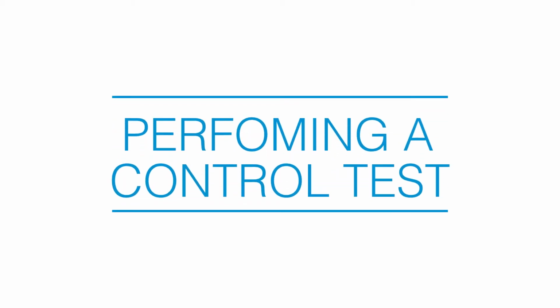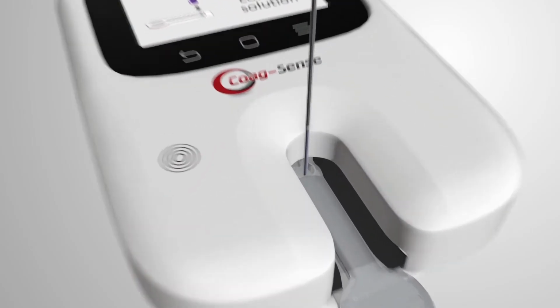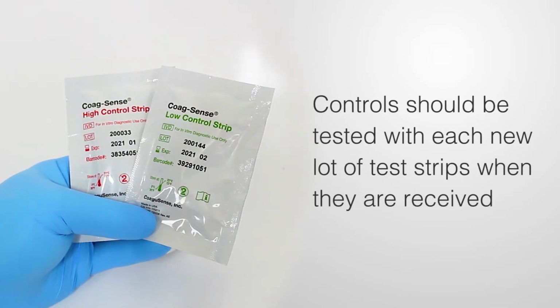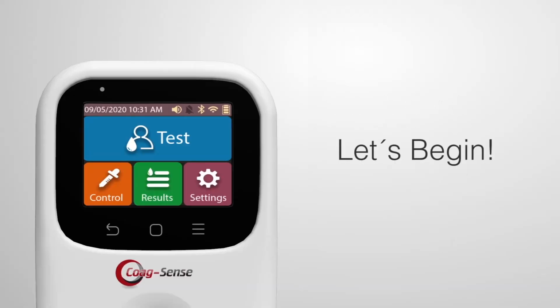Performing a control test. This video provides a brief overview of how to perform a control test. Controls should be tested with each new lot of test strips when they are received.